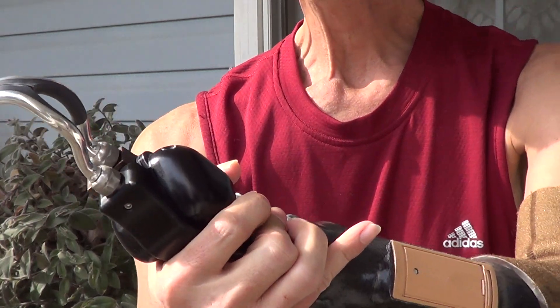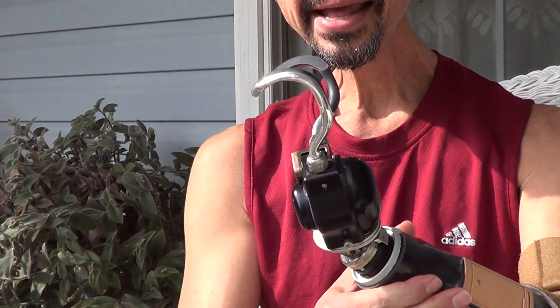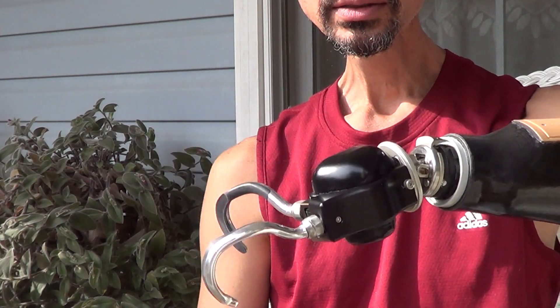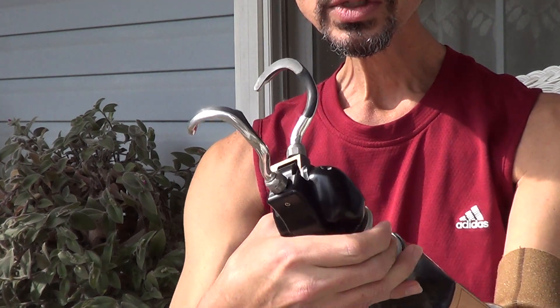Also, I wanted to show you it has flexion. So if I need to take a fork up to my mouth with this hand, I can do it. And it flexes the other way too, so if I'm reaching down to grab some things, I can grab on it. It's really cool.